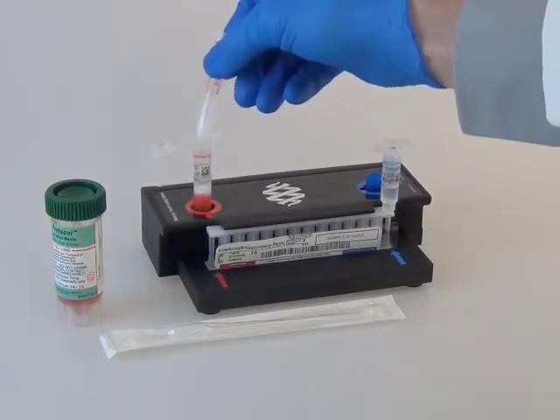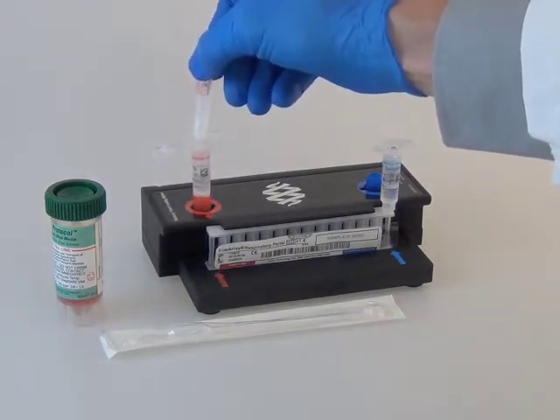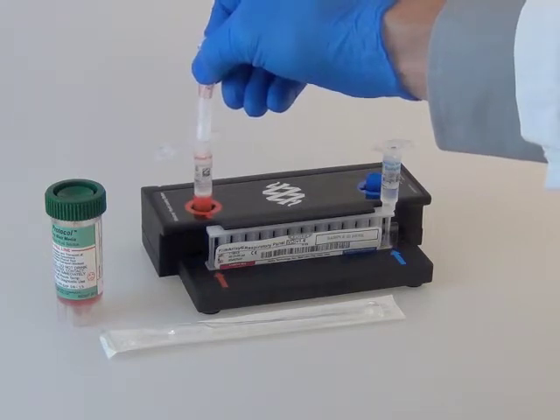With the tip facing down, dispense sample buffer into the sample injection vial using a slow, forceful squeeze, followed by a second squeeze.